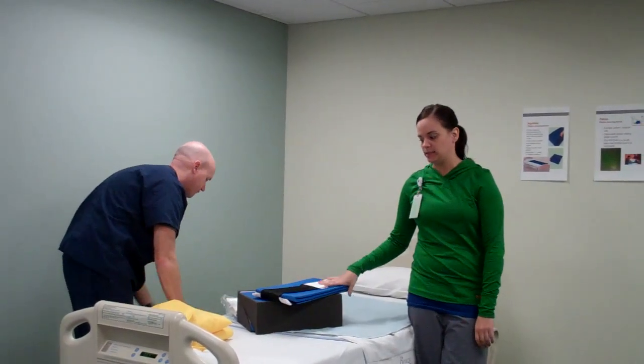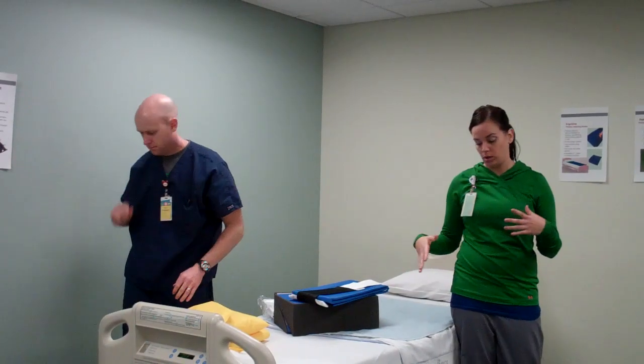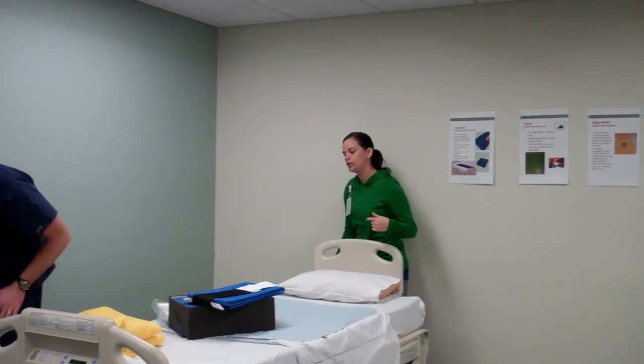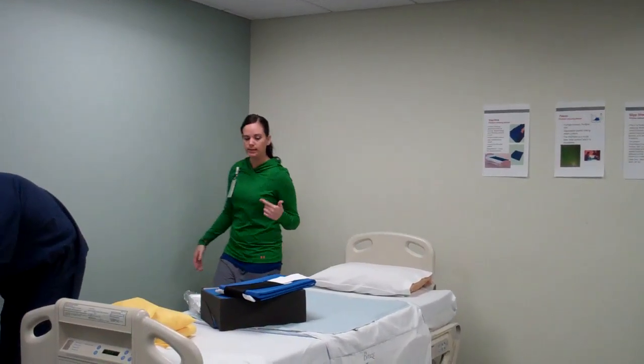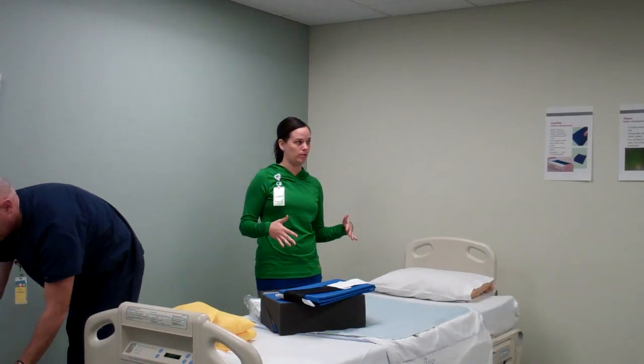In training, this is something that is, for the most part, going to be in the ICUs, but it will also follow the patients up to the floor. And we want it as an option for you guys to use for your completely dependent, bedridden, need-to-be-turned-every-two-hours patients as well.